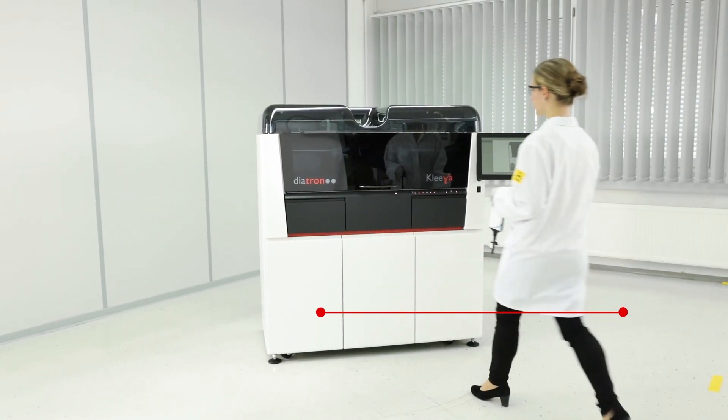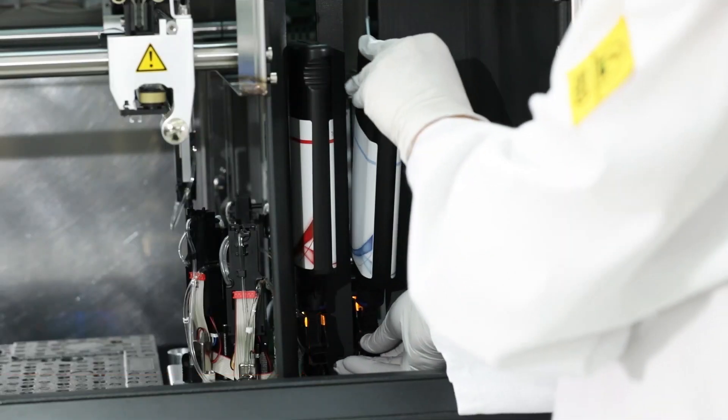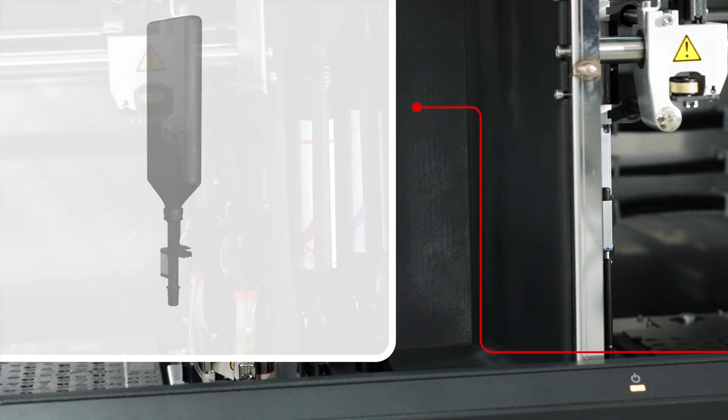The unique trigger cartridge technology allows the use of both flash and glow detection technologies. Hands-on time is minimized by simple loading and unloading of trigger reagents.